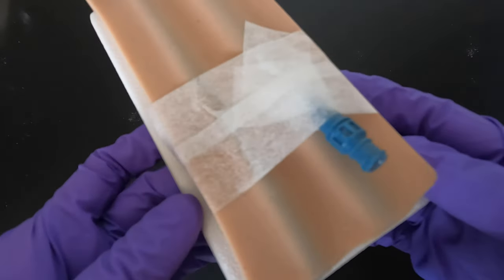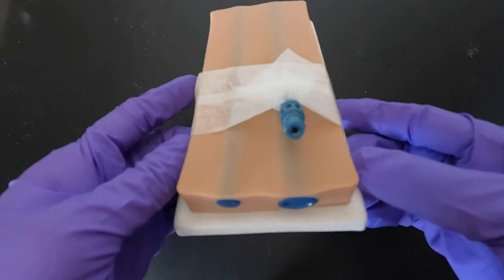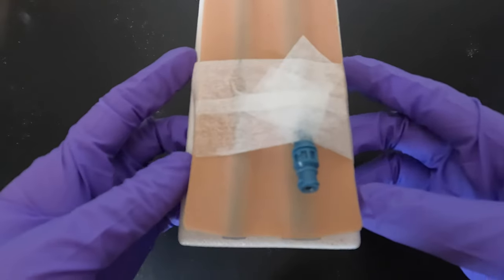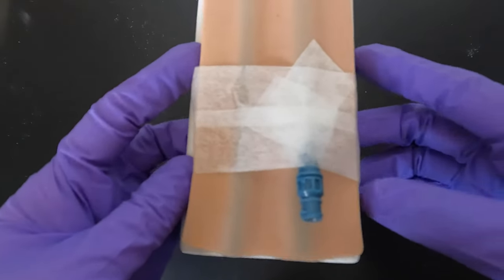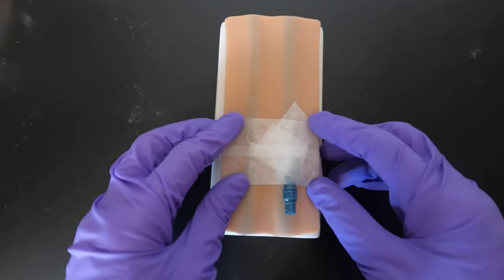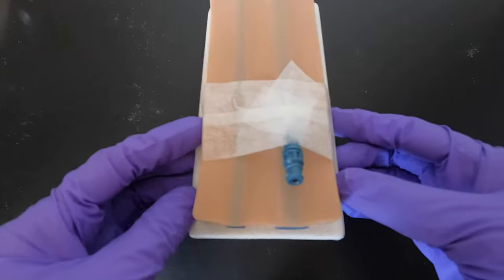The lumen port of this needle is just the same as your steel needle, so you don't need special blood lines for this. You can connect the relay syringe or even the back priming container. Now I'll show you how to take off the needle.